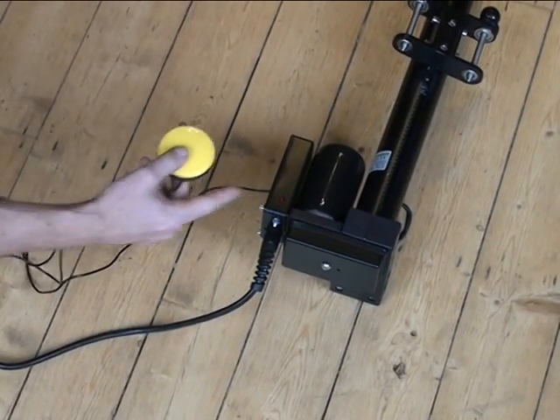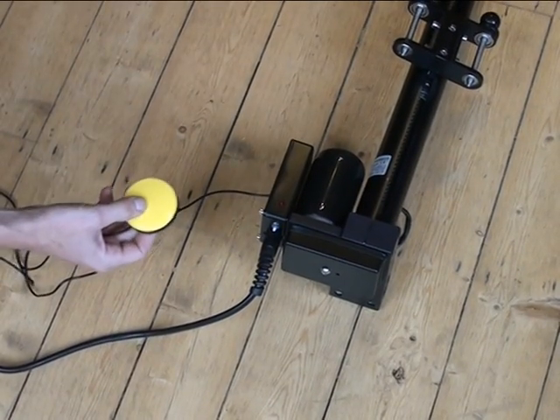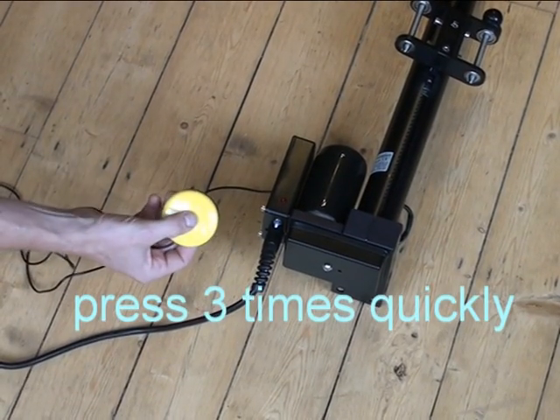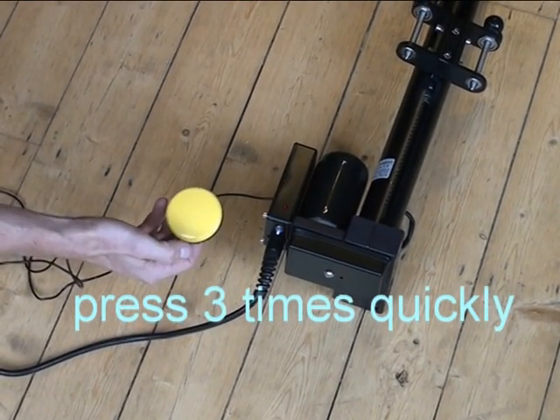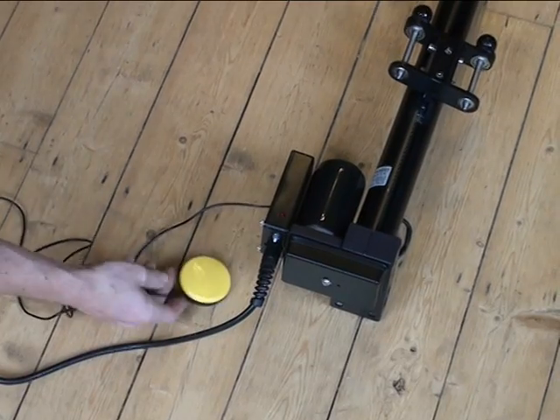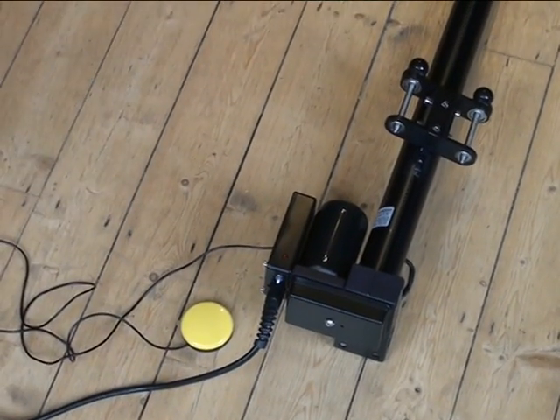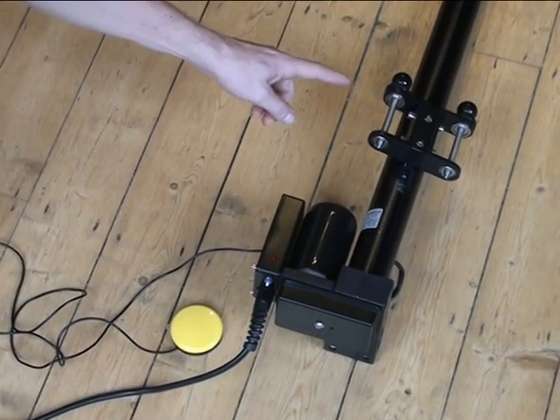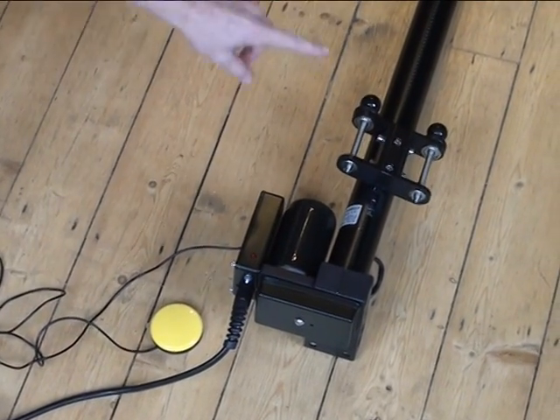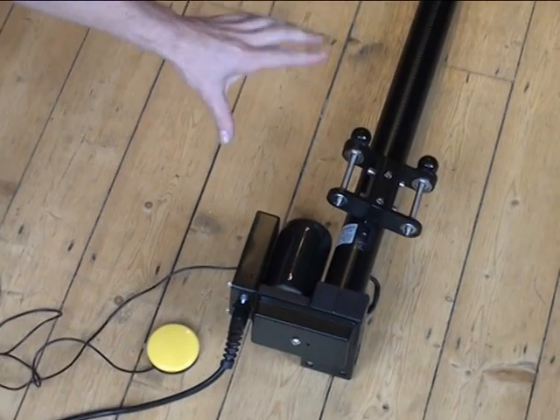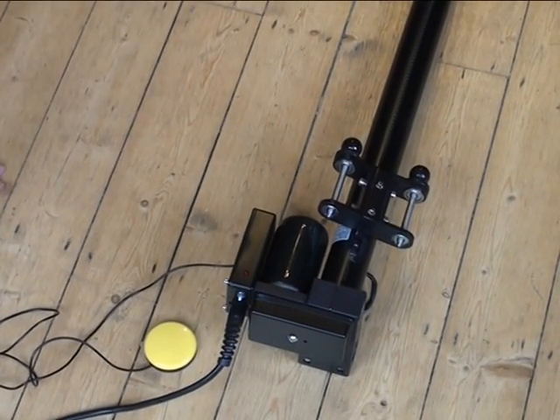Press the switch as fast or faster than the light flashes. The carrier will then move down and up and then back to the middle while it's calibrating.